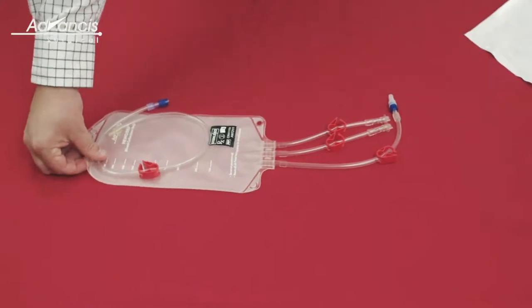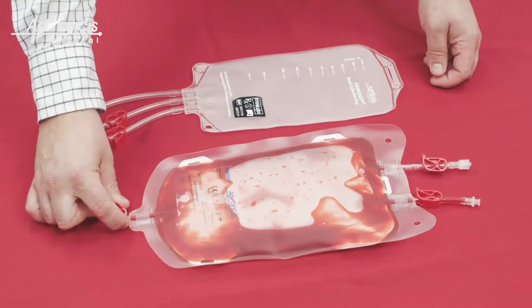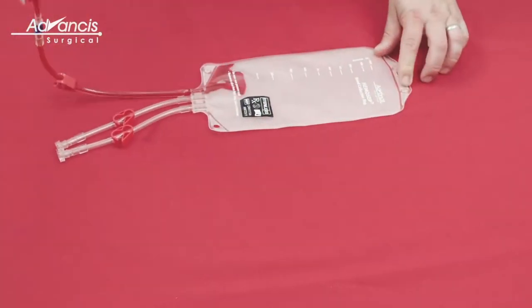Open the blood collection bag and connect to the luer lock on the cell concentrator bag. Open the clamps and elevate the cell concentrator bag to allow the processed blood to drain to the blood collection bag.